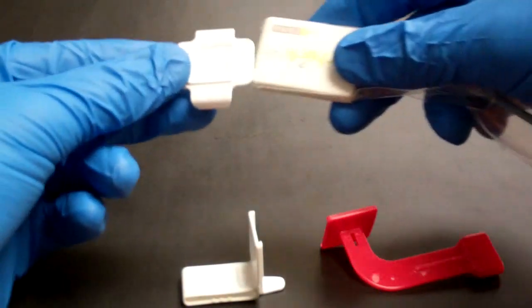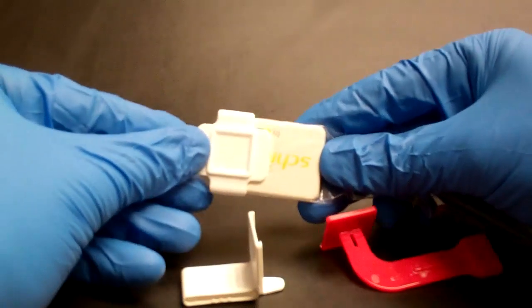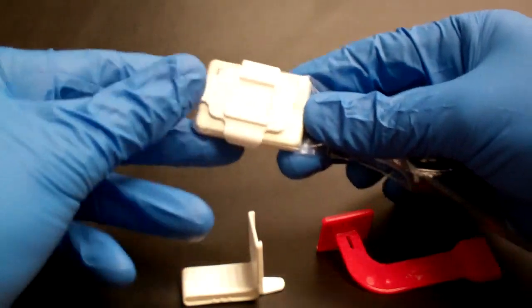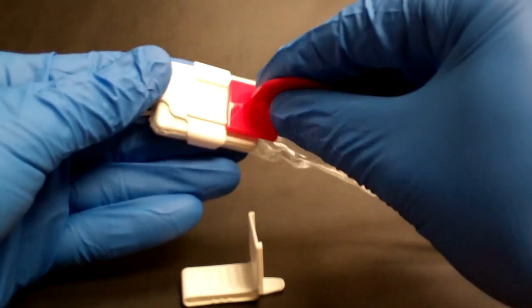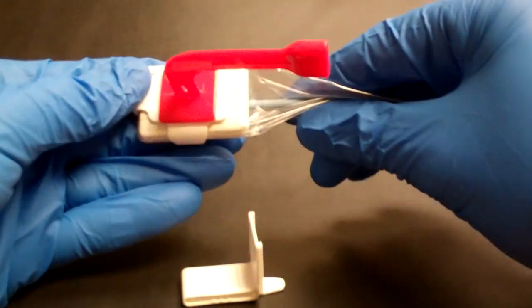The size 2 base is white, and this is a size 2 Schick 33 sensor. You can see we just slide the base on, and then for a horizontal bite wing, we attach our bite wing bite piece, and there we go.